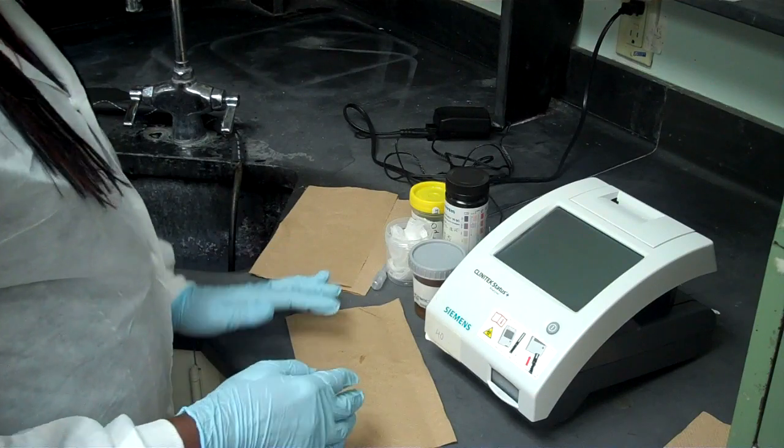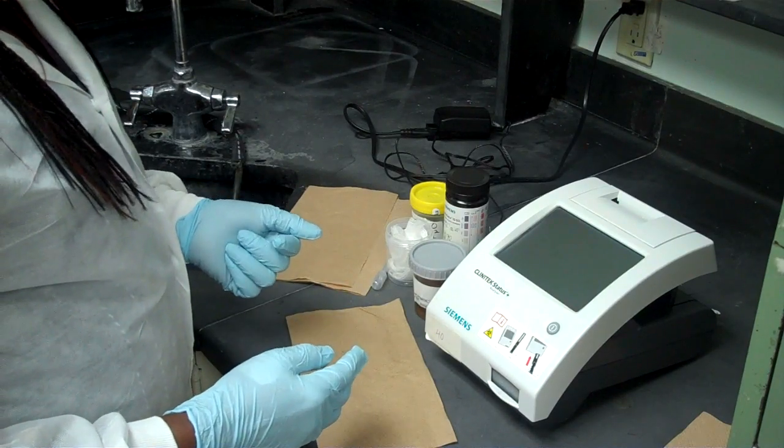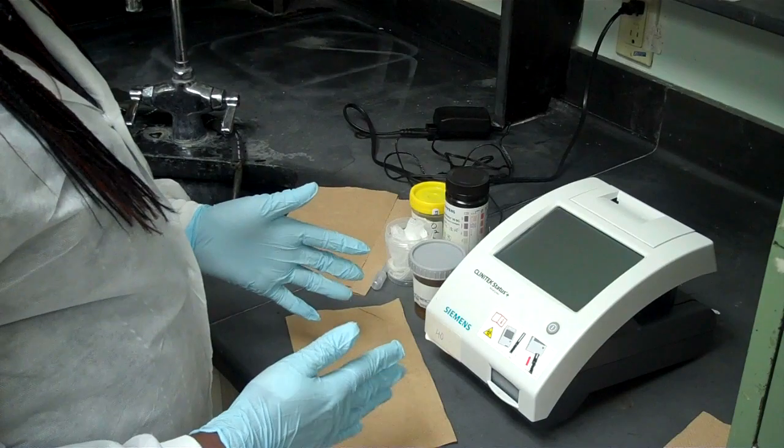Today we're going to perform a urinalysis. We're going to use a Clinitek analyzer.